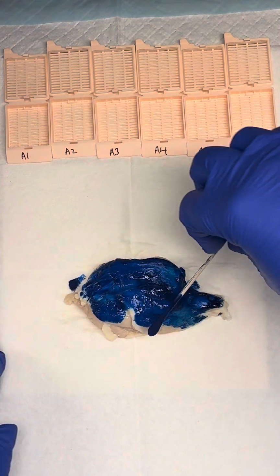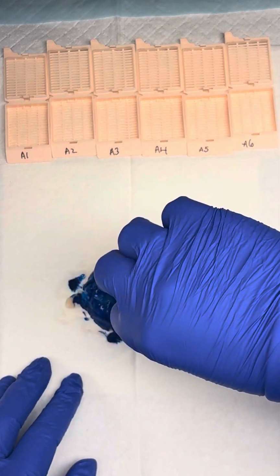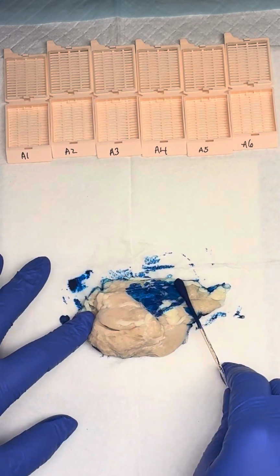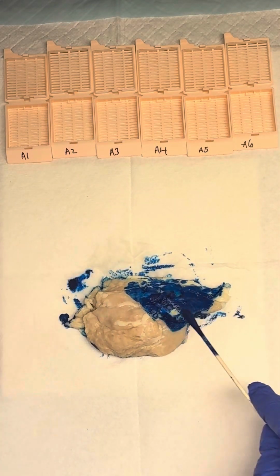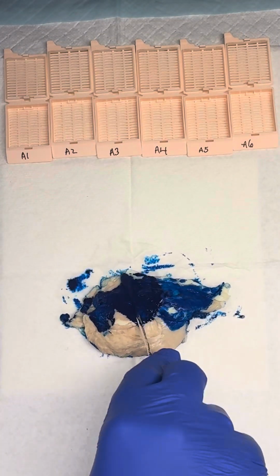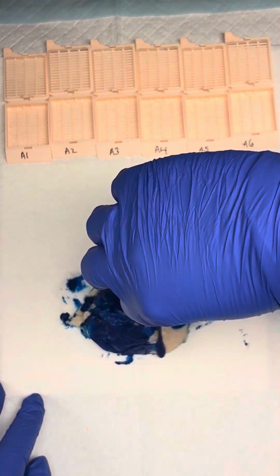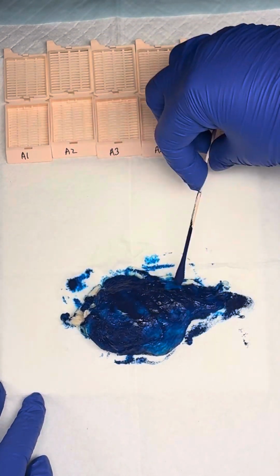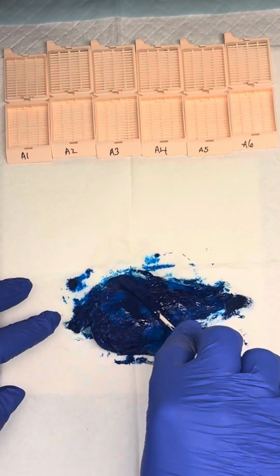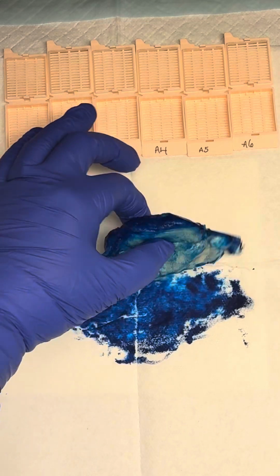Those are going to be our big directional orienting features that we would want to document, because we know anteriorly we have not really anything, but posteriorly we have our pericardium and possibly our lungs. So if we had orientation provided by the surgeon, we could ink two colors and you would differentiate anterior versus posterior. All right, so we're entirely inked here.